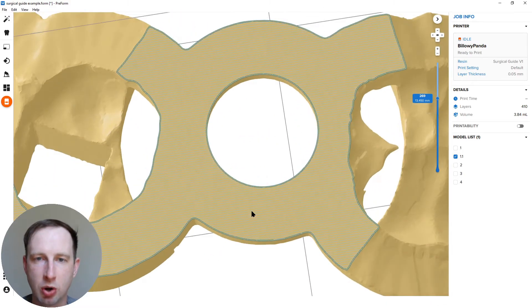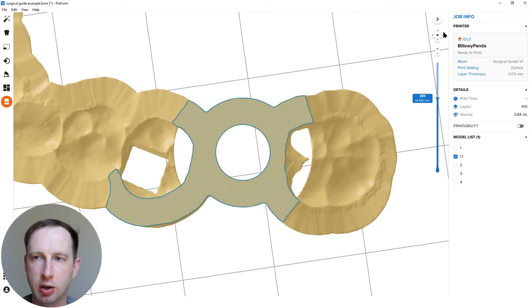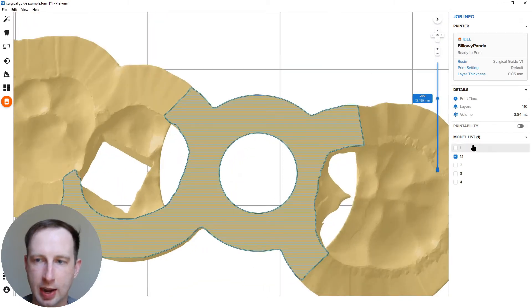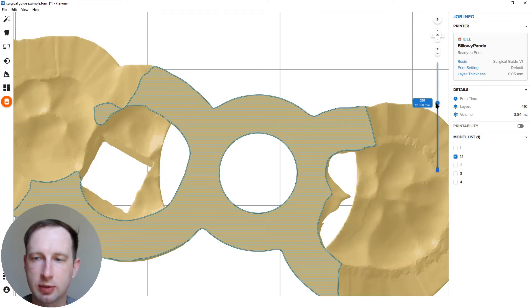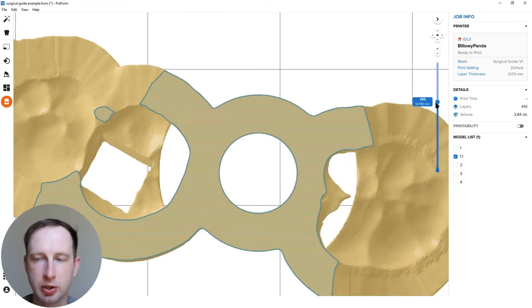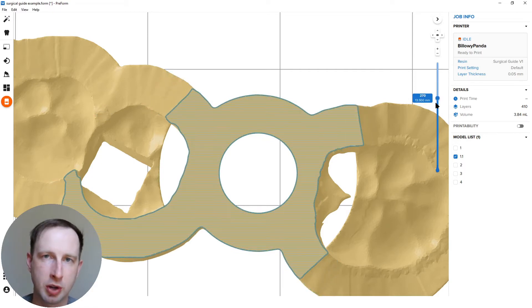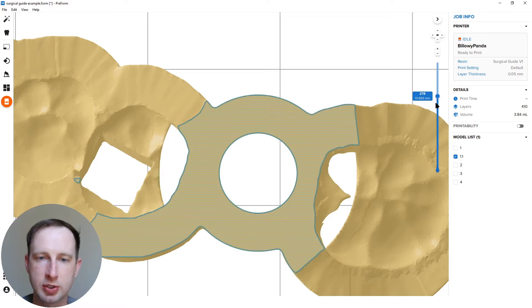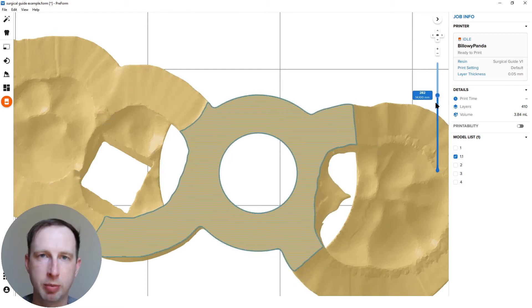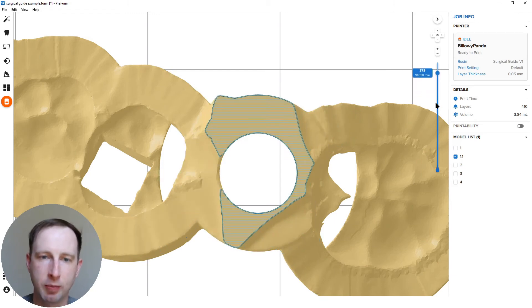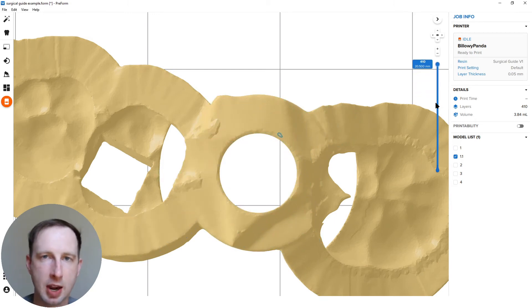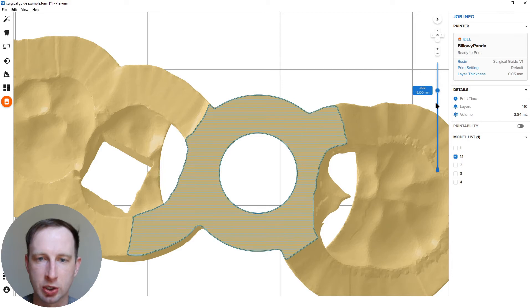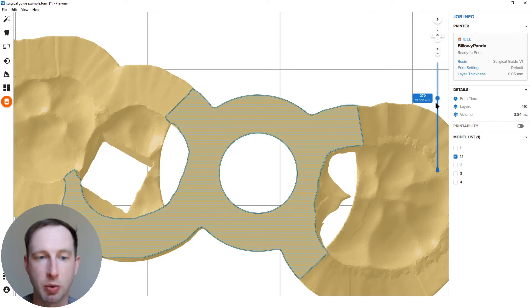And it's really apparent when you go into the slicing tool. So I'm going to grab my view tool here on the right and zoom in. And now I've got my slicing tool here. And you can see, so this is virtually printing the job. You can use your mouse to click and drag, or you can use the up and down arrows to go slice by slice. This right now is set on our surgical guide resin at 50 microns. And you can see through the whole slice, this hole is perfectly perpendicular to the build platform. There's no angulation. There's not going to be any stepping with this drill hole or sleeve hole, because the drill kit is actually going to the sleeve itself. So that's really what we're striving for.